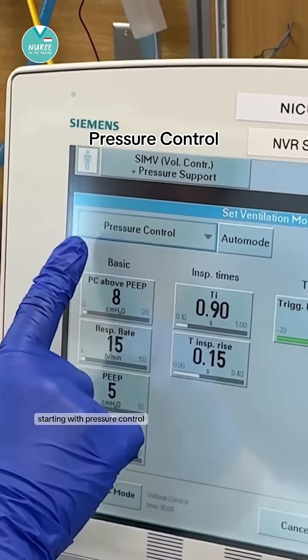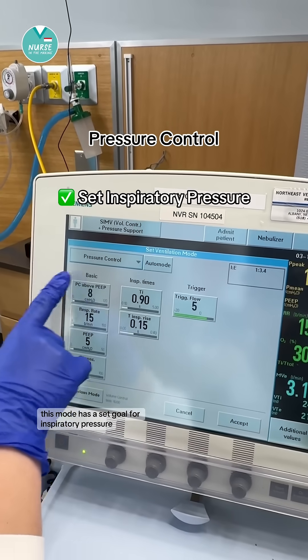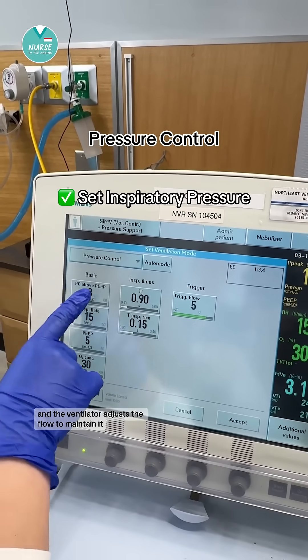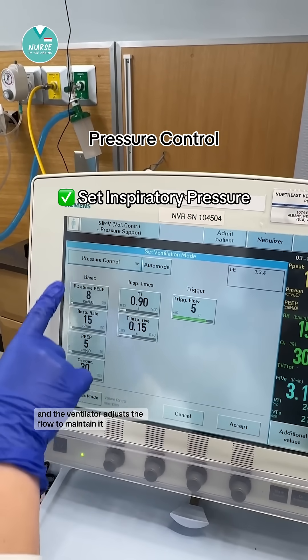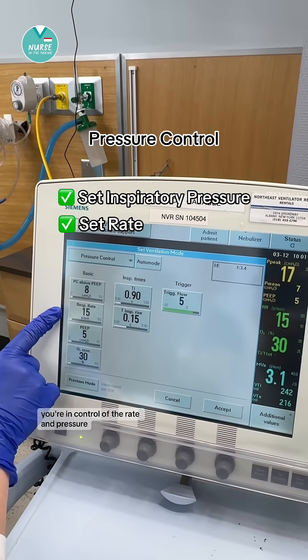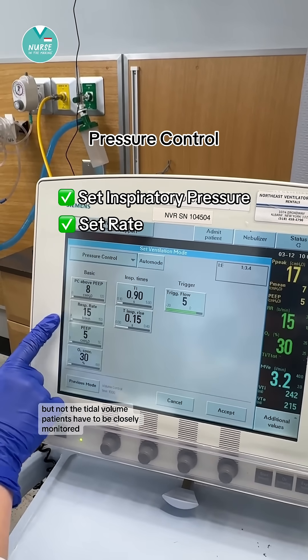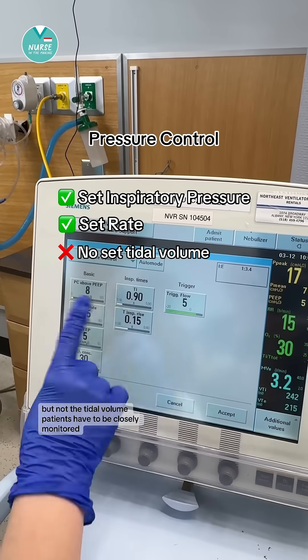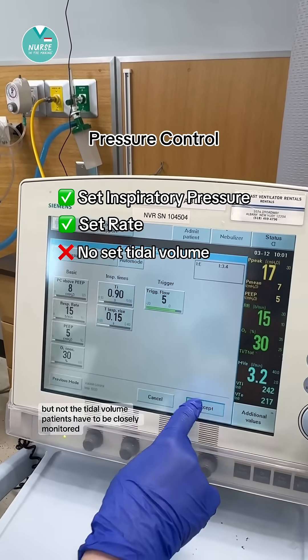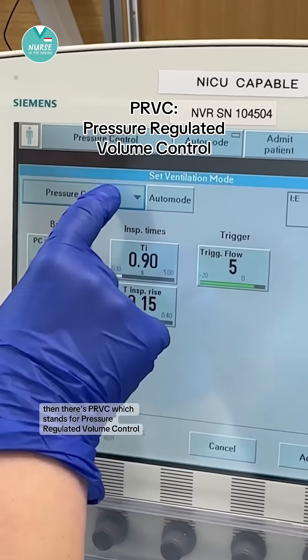Starting with pressure control. This mode has a set goal for inspiratory pressure and the ventilator adjusts the flow to maintain it. You're in control of the rate and pressure, but not the tidal volume. Patients have to be closely monitored to make sure they're getting adequate tidal volumes.